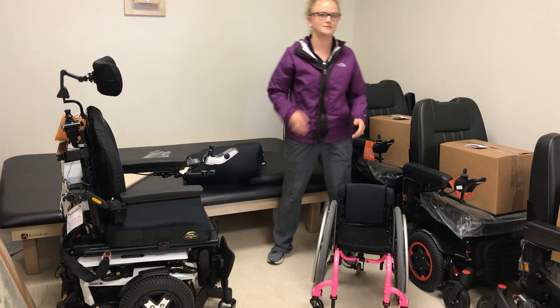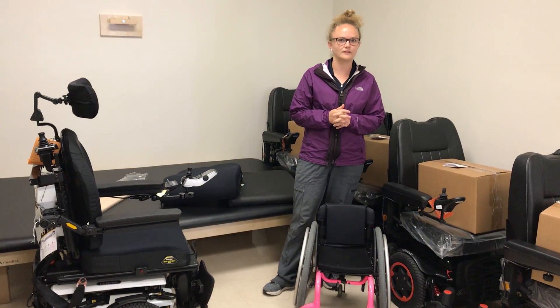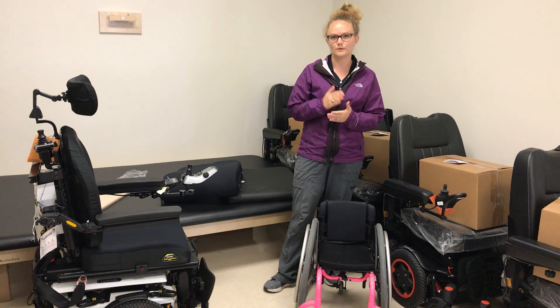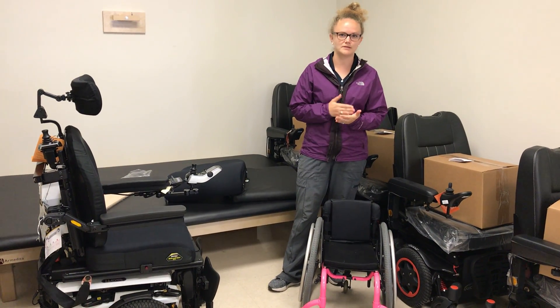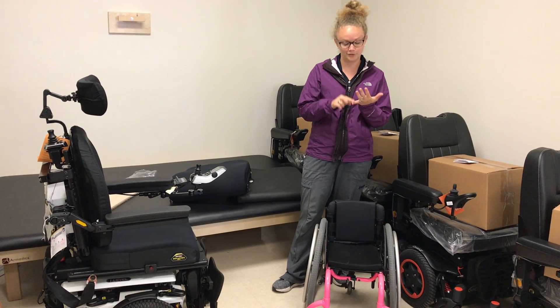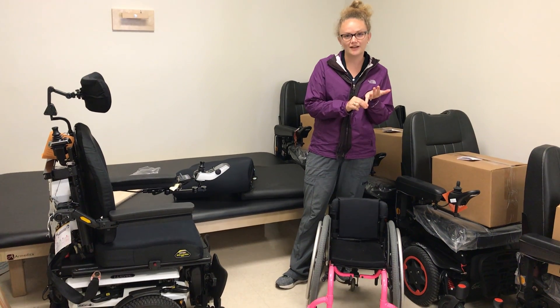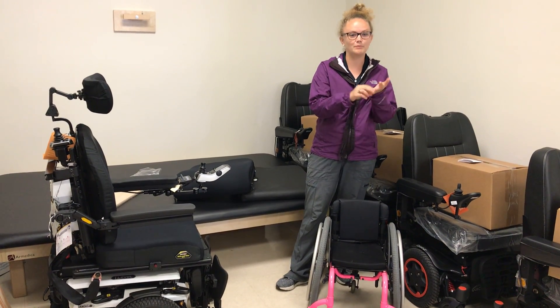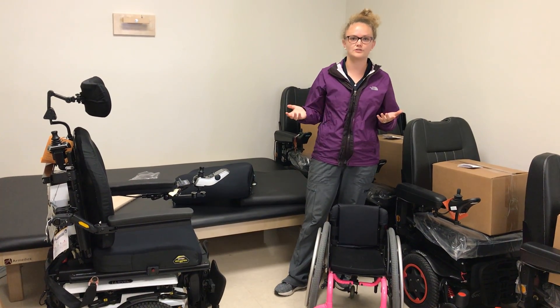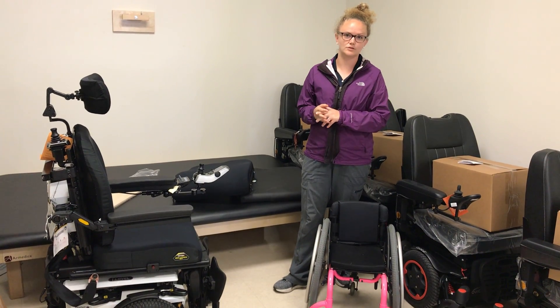Some different aspects — the first aspect to consider is definitely their activities of daily living, so what they do on a daily basis all day, which would include their transferring, maybe pulling up to a desk or their workspace, or even engaging with the community and their peers.